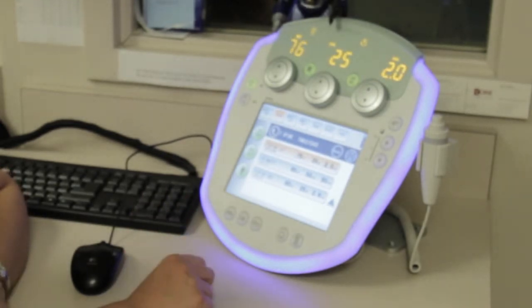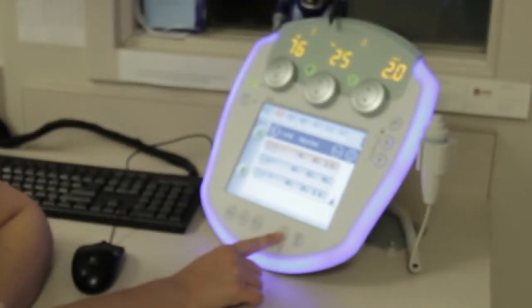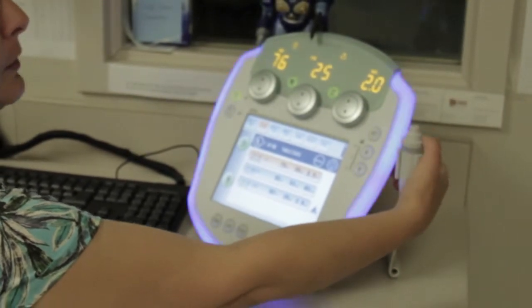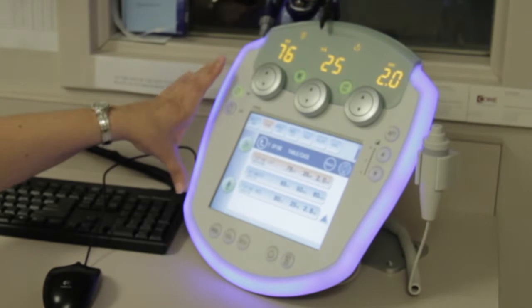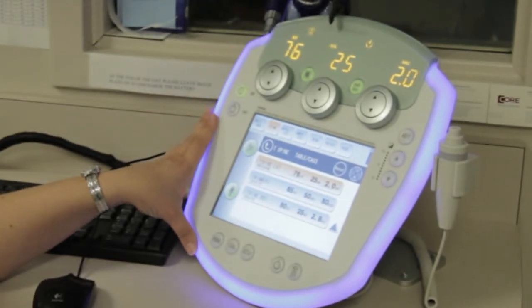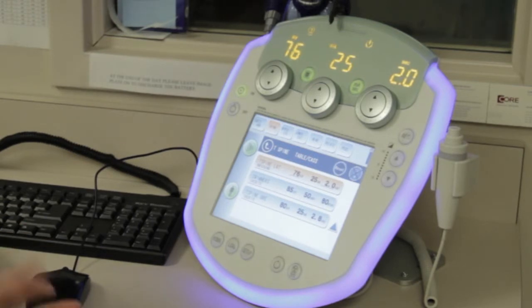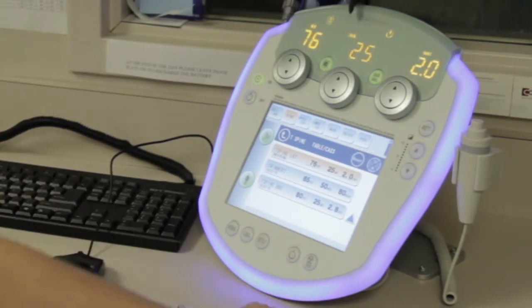One more note about this system: it does prefer that you rotor up and wait for that rotor to be ready before you make your exposure. You have a rotor button here. Let me switch to tabletop — I have a rotor-up button here and I have to wait for this to go solid green and for that beep before I can expose. For those of you that like the hand switch, it's halfway down — again wait for that solid green before you expose all the way. The reason is the generator knows what MA station you've chosen once the rotor-up signal is given; that MA station is then ready to shoot. If you go straight to exposure without rotoring up, the generator will try to compensate and fire before that MA station is fully heated and ready, so you may not get your full exposure.